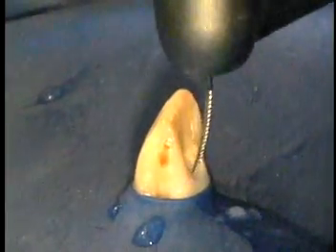You can see in this action that the file is bowed against the walls of the canal. The pressure is put on the outstroke. By putting pressure on the outstroke, you reduce any chance of ledging. These have very small non-cutting tips, and the files are meant to cut on the side, so it's almost impossible to ledge with them. All the contours of the canal are followed, keeping the original anatomical shape intact, and only enlarging upon it.